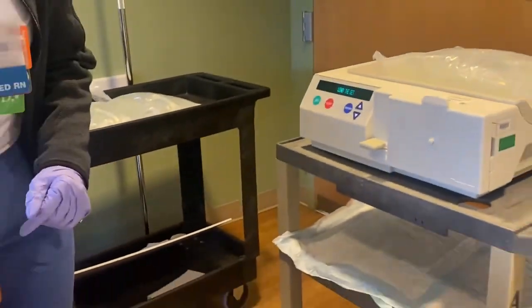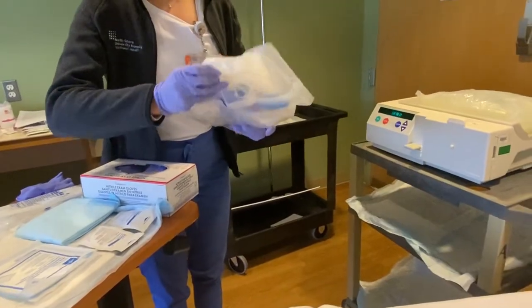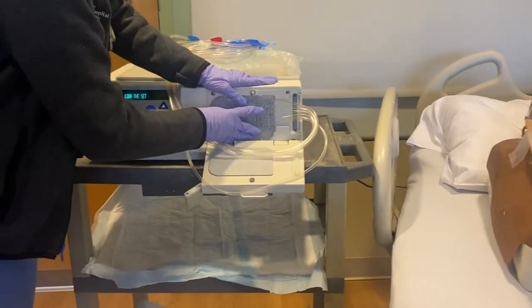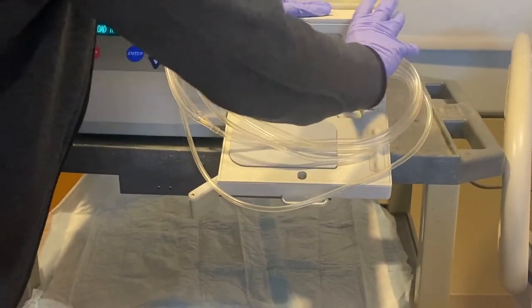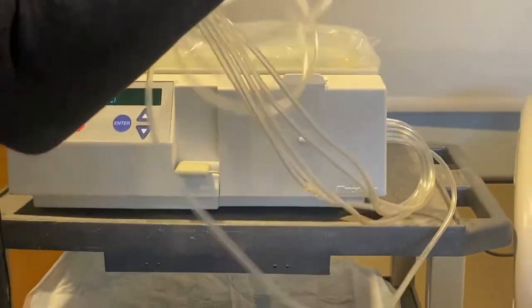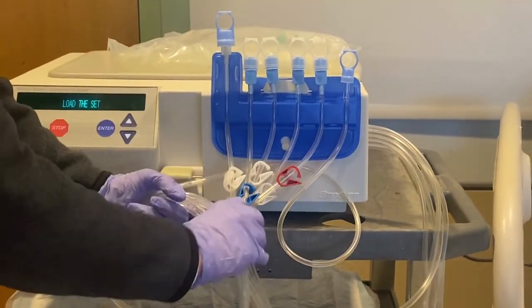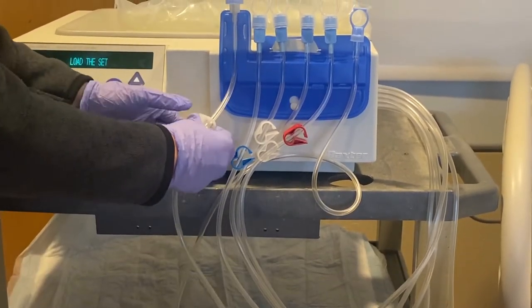This is referring to our cassette located here. Open the packaging — place garbage on the floor and we'll clean up after. Load the cassette into the machine with the tubes facing upwards; otherwise it won't fit. Make sure the lever pulls all the way down. Place the lined tubing right here to line up onto the lever. These are all the lines we'll connect to our bags. At this point ensure everything is clamped.